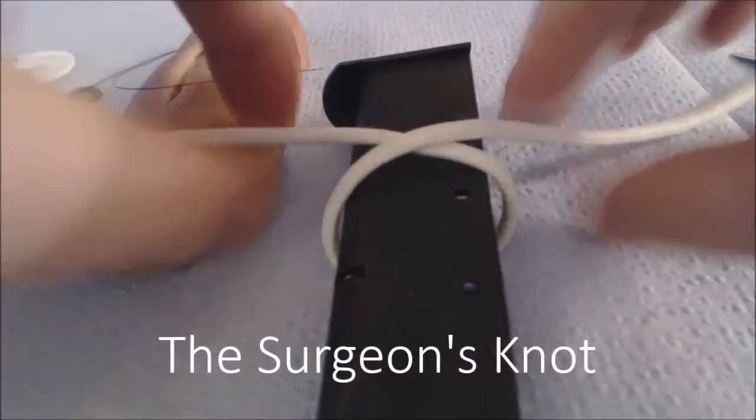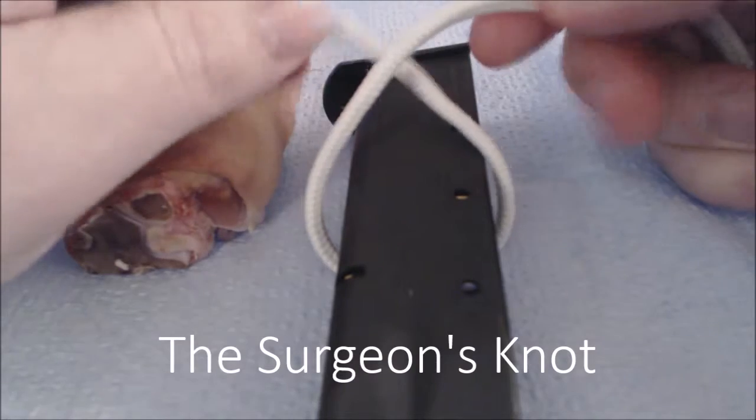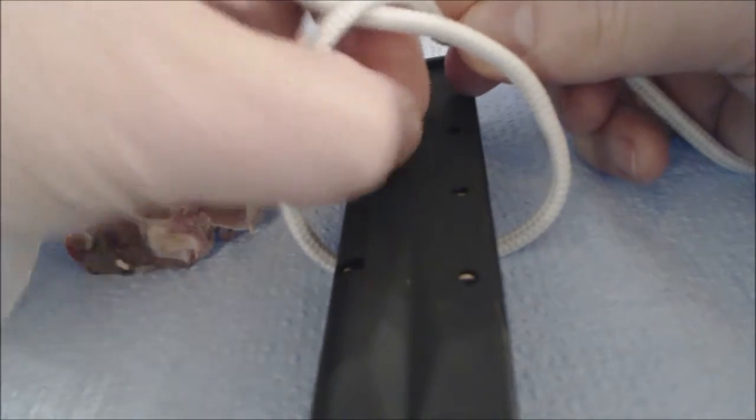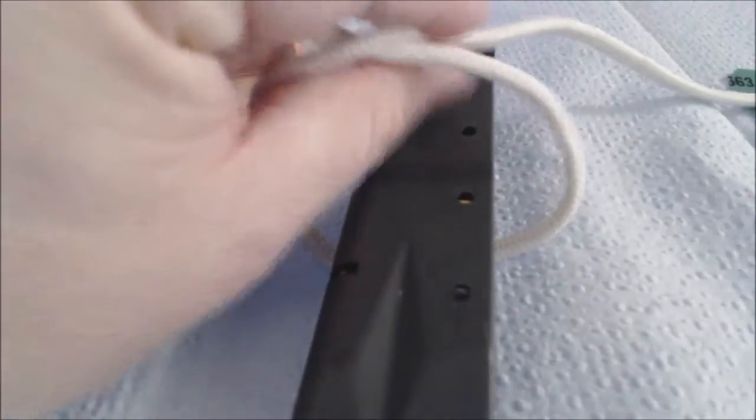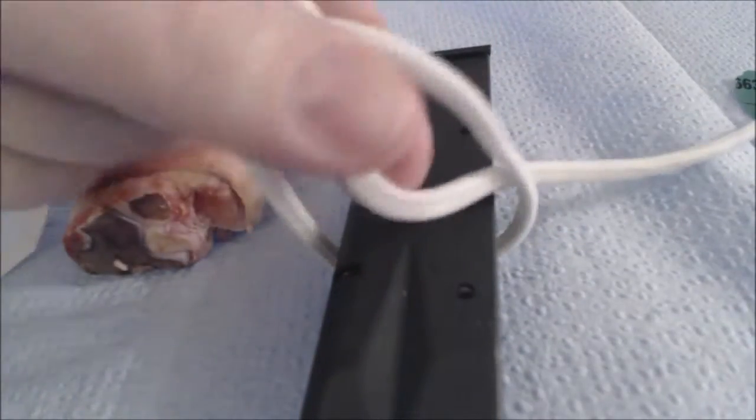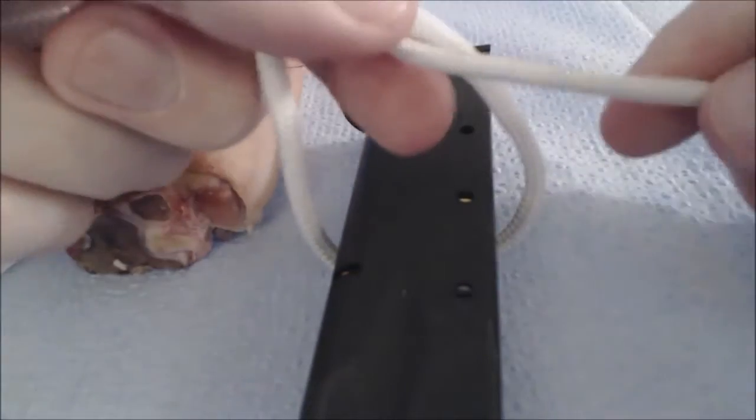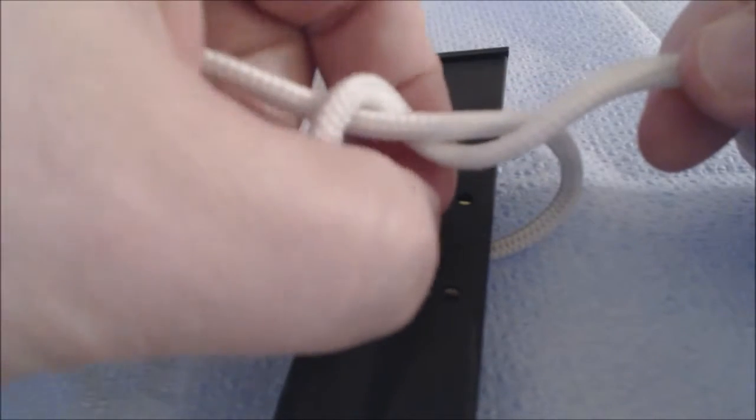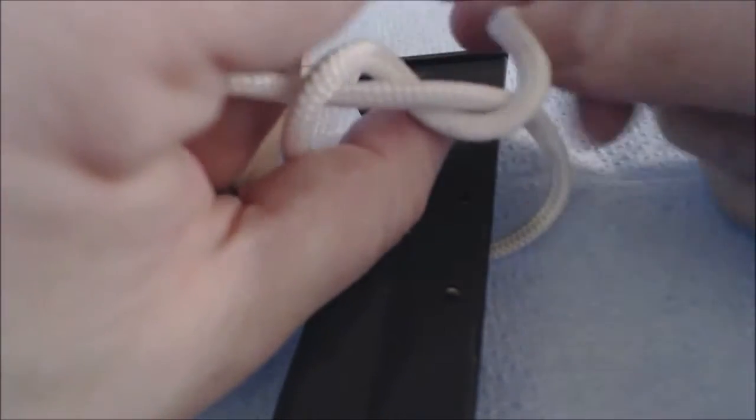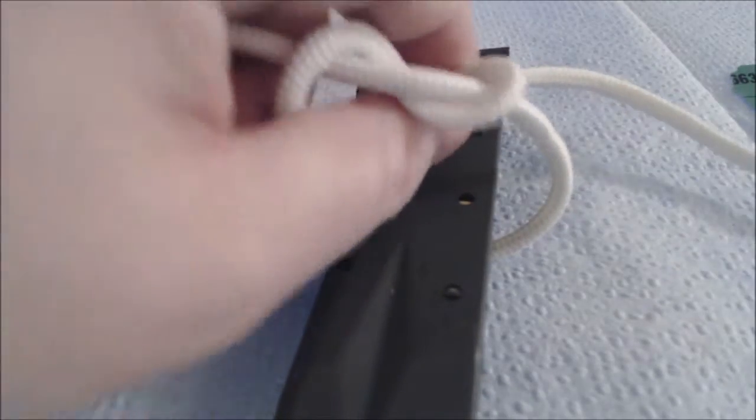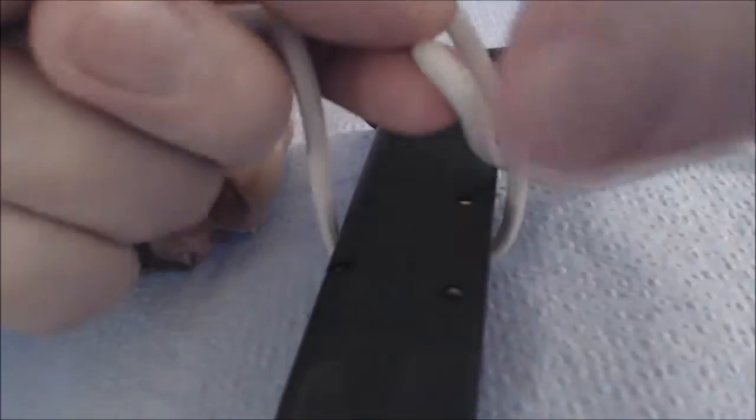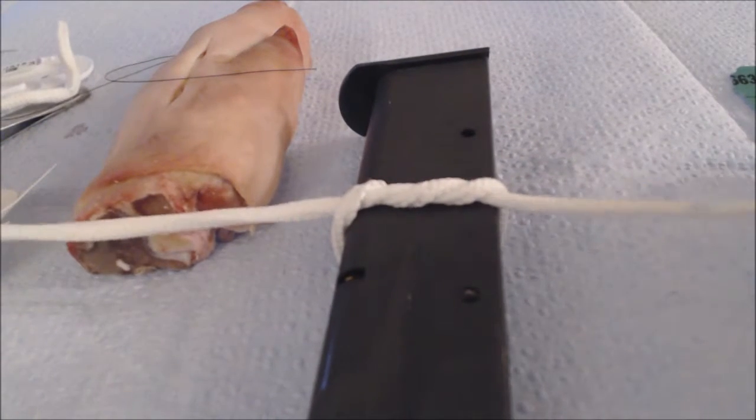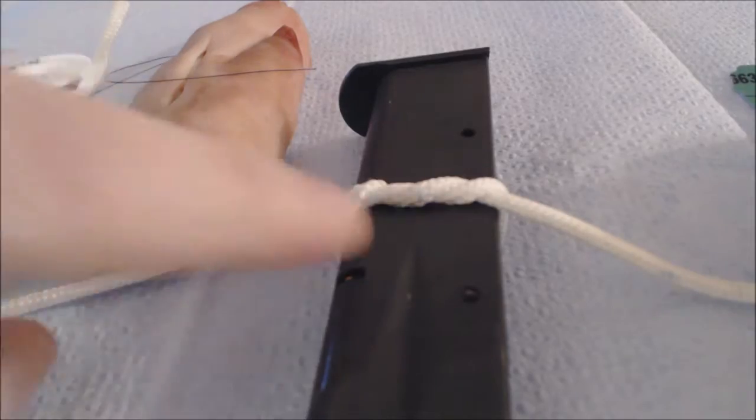Again, we'll start by crossing our suture material or shoelace, putting our index and thumb together, pushing those out away from us, grasping the free end, and then bringing it through. But instead of tightening it down at this stage, we're going to repeat the maneuver. Our pincer movement will go out away from us, grasp the end of the suture, and once again, bring it back toward us. When we cinch it down, we'll see that the knot stays reasonably tight and there's no air knot.